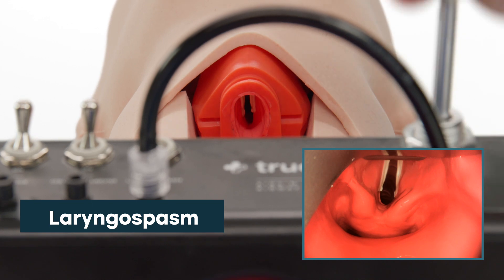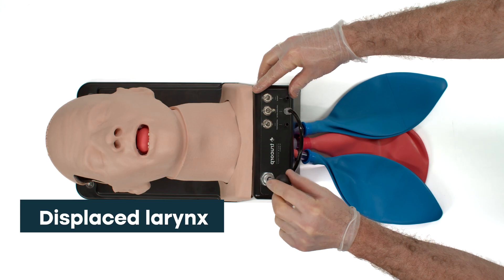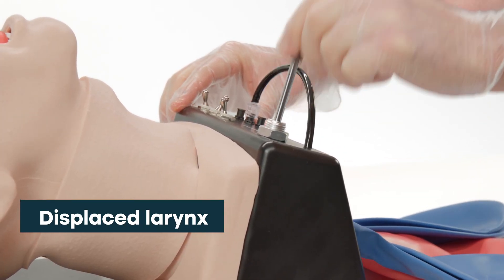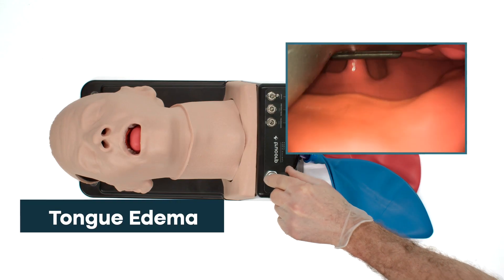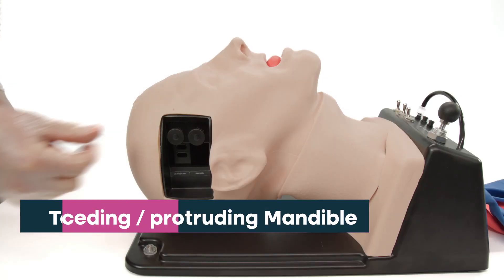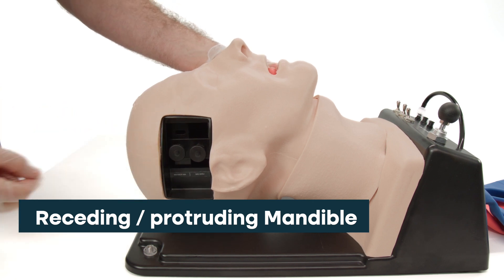Laryngospasm — adjustable from normal to complete airway obstruction. Displaced Larynx — the ability to displace the larynx into a more anterior position. Tongue Edema — the ability to simulate various degrees of tongue angioedema. Receding and protruding mandible with various degrees of malocclusion.